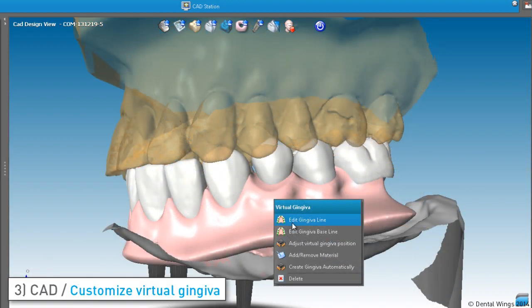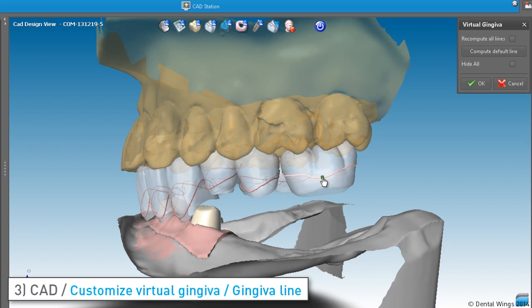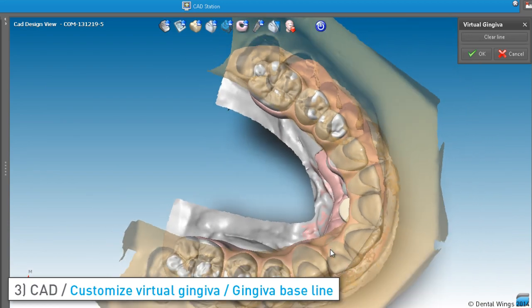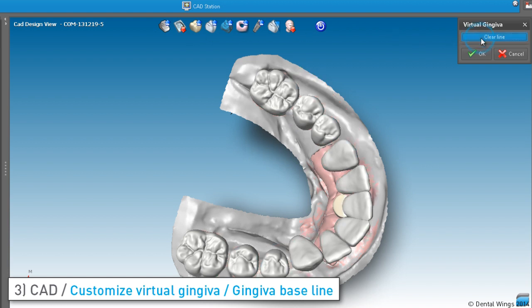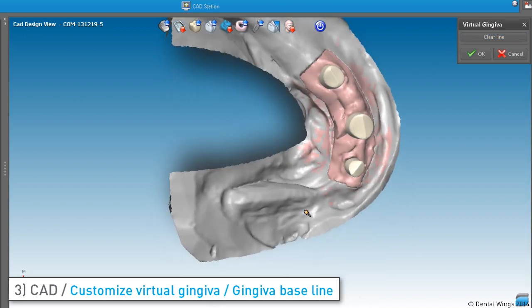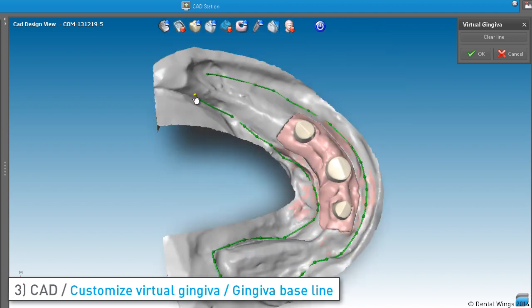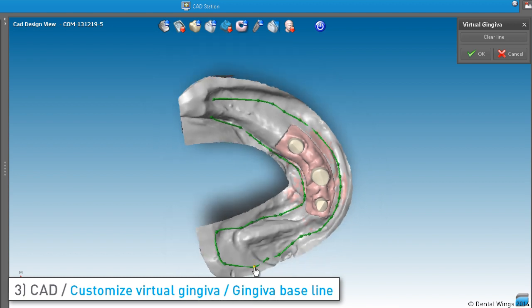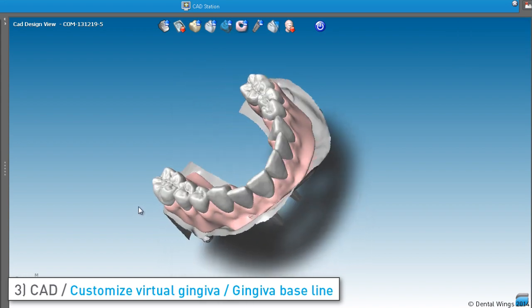The virtual gingiva is also fully customizable. The Edit Gingiva line lets you personalize the contour of the gingiva around the anatomies — just move the given handles and the pre-curved line will be adjusted. If you need to adjust the base of the prosthesis where it contacts the model's soft tissue, use the Edit Gingiva Baseline function. You can erase the existing line by clicking Clear Line and freely draw your own by dragging the cursor on the model.